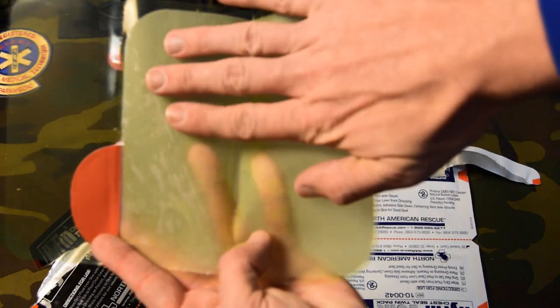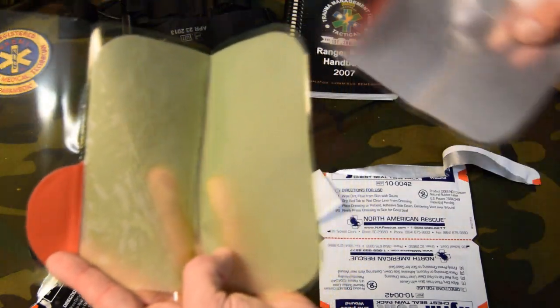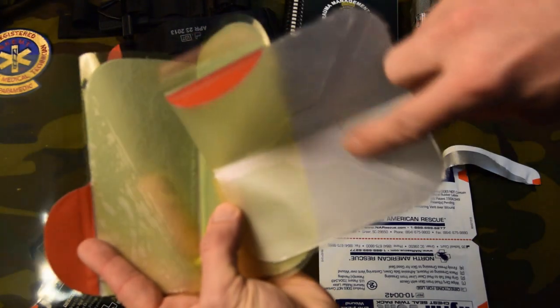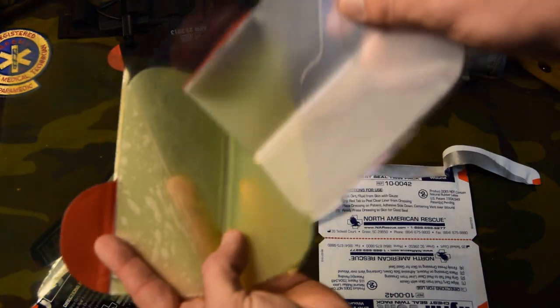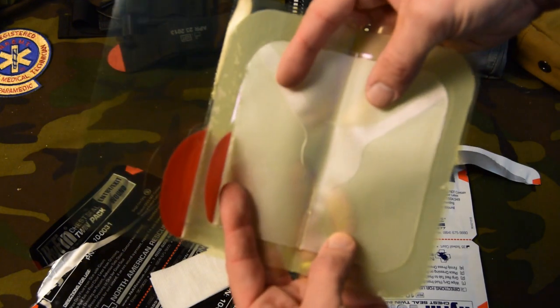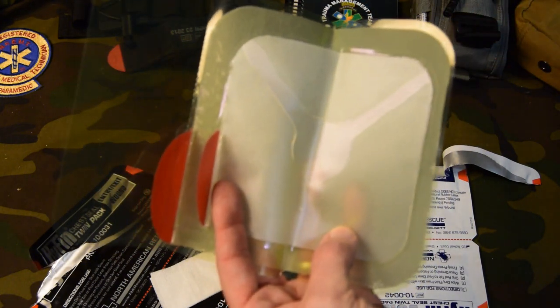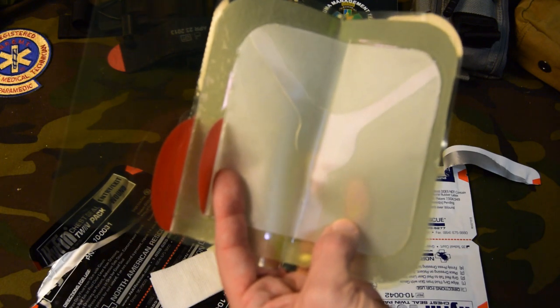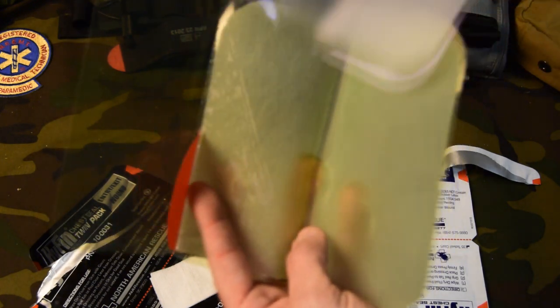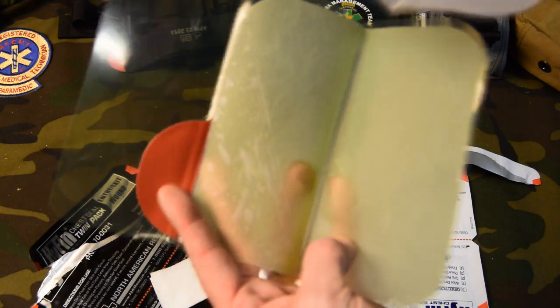Here's a little bit closer look. This is all one smooth surface here on the non-vented, and you can see the vents here on this one — one, two, three vents. Overall, it's a little bit smaller. But we're dealing with penetrating trauma here, so you're dealing with a gunshot wound, a knife wound. Obviously you can have multiple wounds in the same area, so this is going to cover a larger surface area.